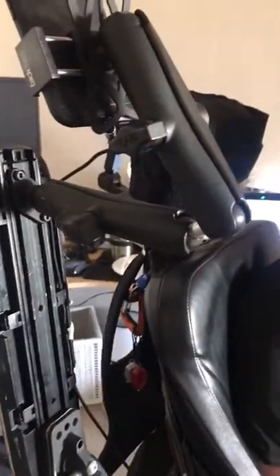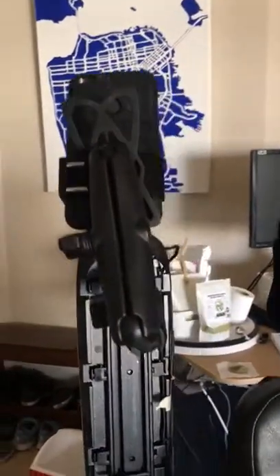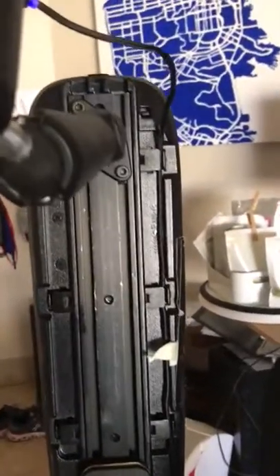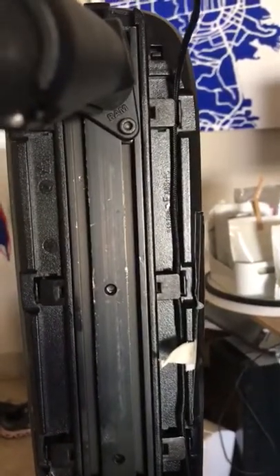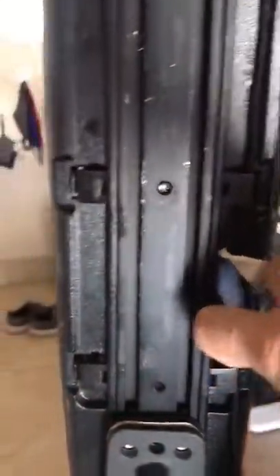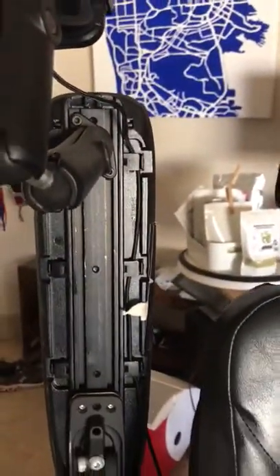Power-mobile chairs have these little spaces where you can push cables through and have the chair hold onto them for you, so that the cable doesn't come loose and start dragging on the wheels.